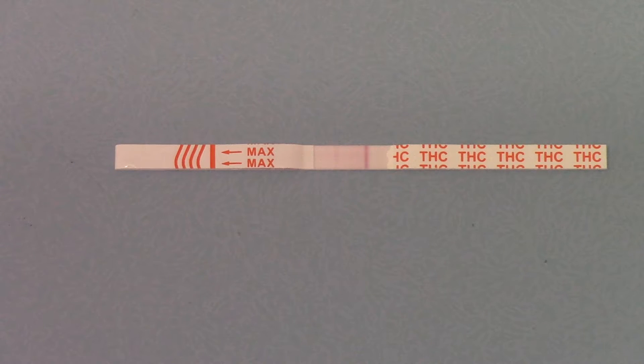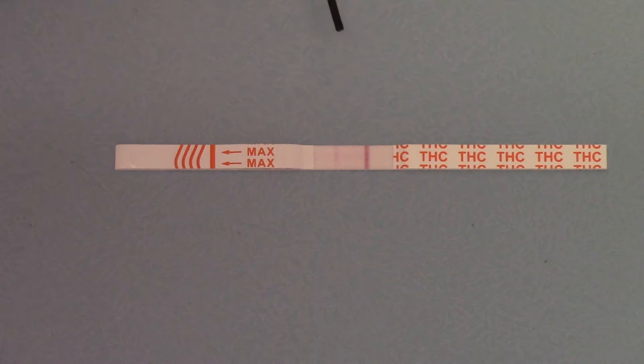This is an osmotic process — it's absorbed into the area where you've dipped it into the urine sample and then sucked along the line of the test strip through that central zone. When you see this dark control line forming — I'm just going to point that out with the marker — it's forming quite clearly and darkly towards the handle end, indicating that sufficient urine has been added and that the membrane has run fully to the control area.